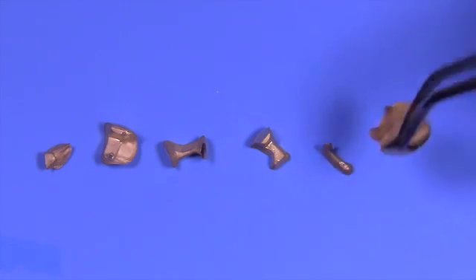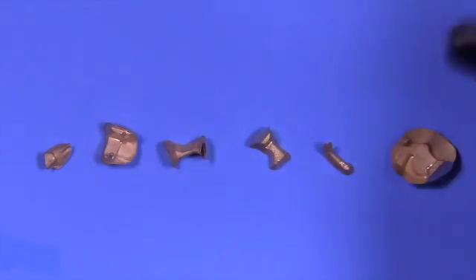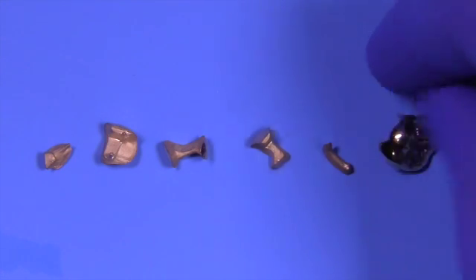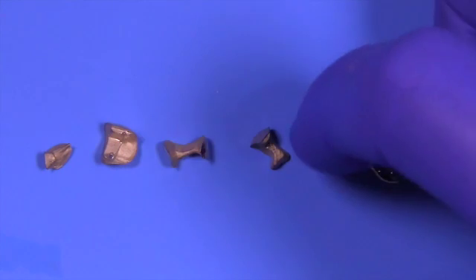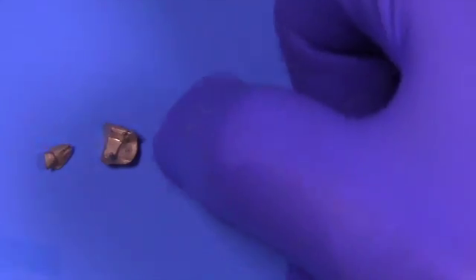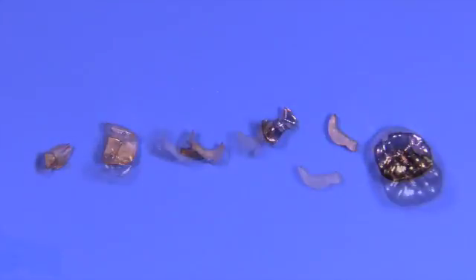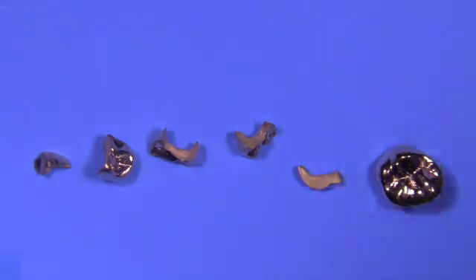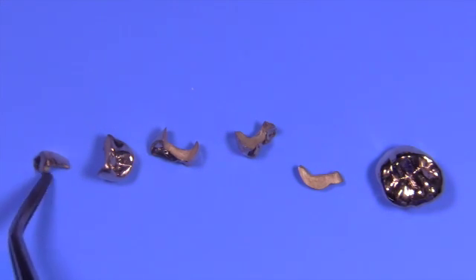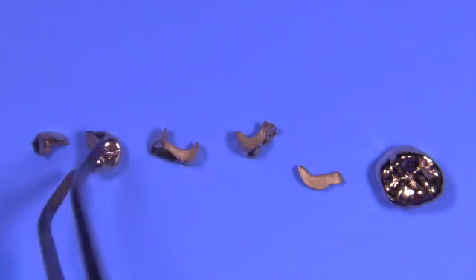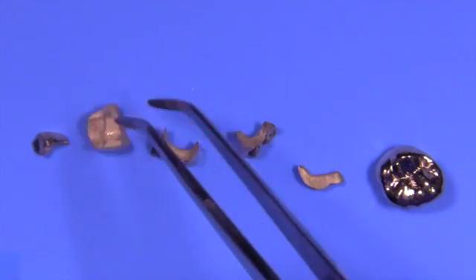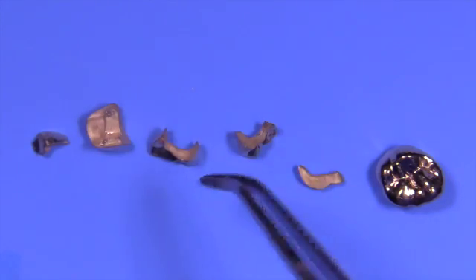These are routine—these are not special for him. This is just what you get from Coi Habich's castings. They're phenomenal. I believe that when you see how easily they can be delivered to the patient with minimal adjustment, you'll understand why Coi Habich is so popular amongst those of us who do gold castings frequently.